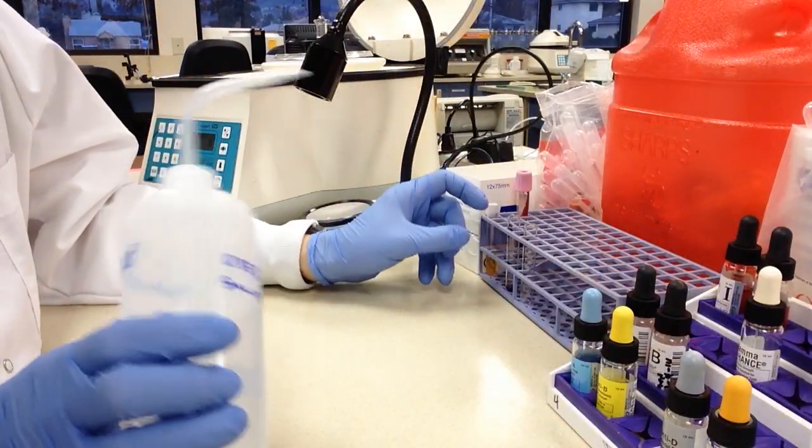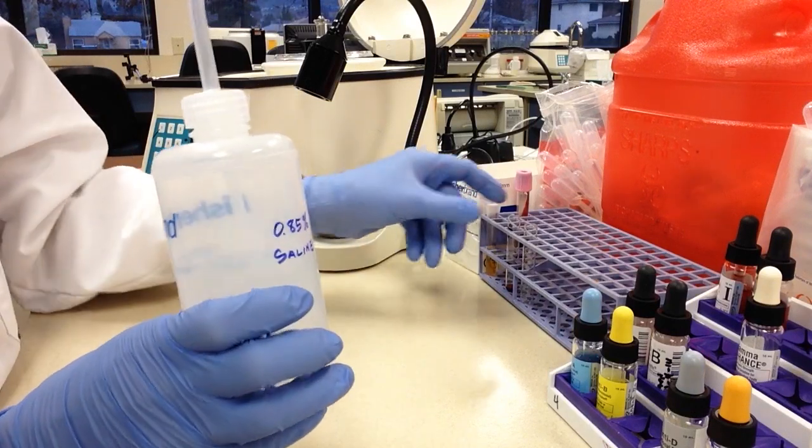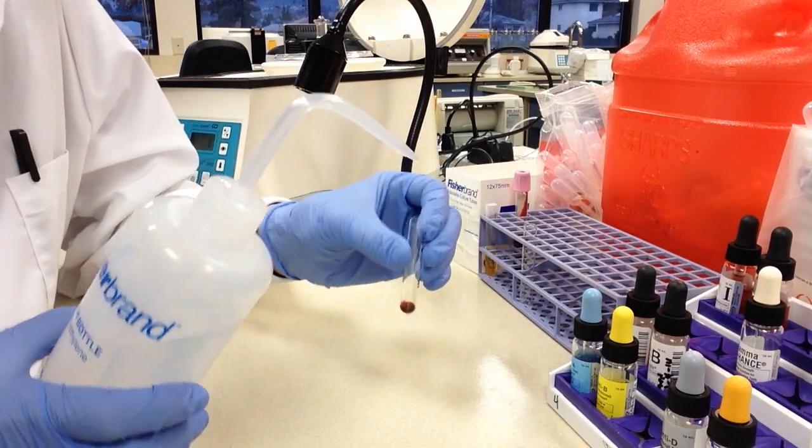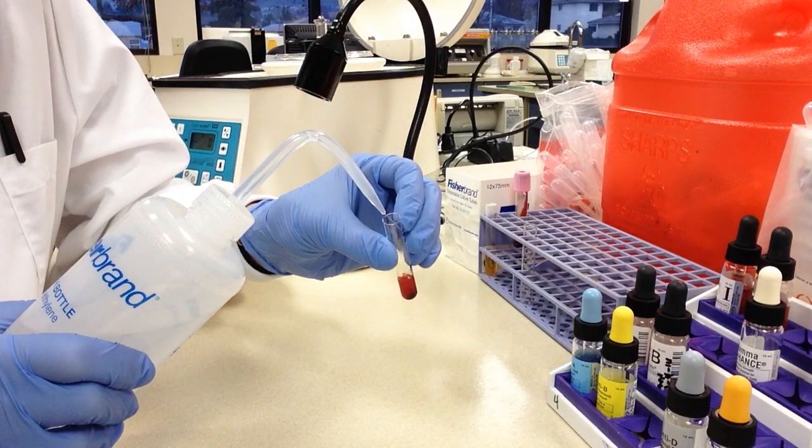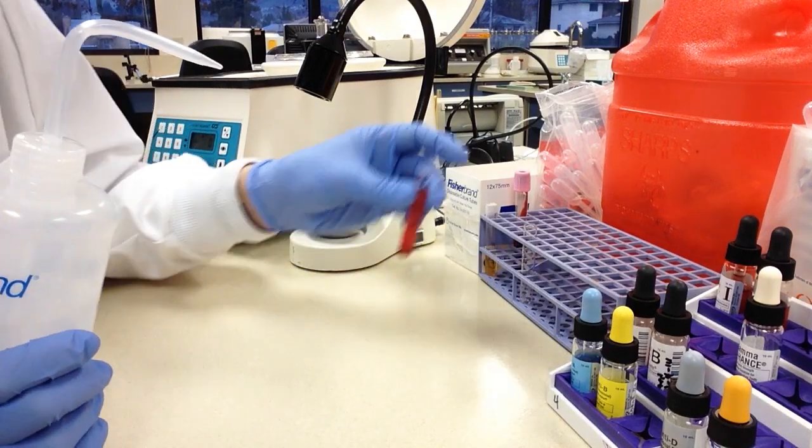Alright now go ahead and take saline, make sure you're using saline and not water because of course if you use water the water is going to hemolyze your red cells and you're not going to be able to use it. So we're going to fill this about 2 thirds to 3 quarters full. I'm going about 3 quarters.